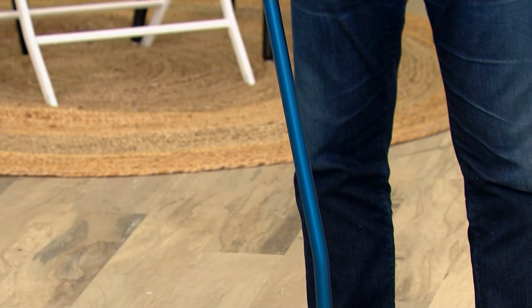People who use a cane — it should be something that's sporty and fun, in colors that you like. Something that's an extension of your personality. Everything from the handle of this cane down to the bottom is just a better walking stick.